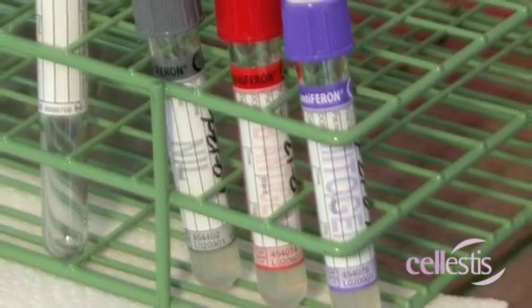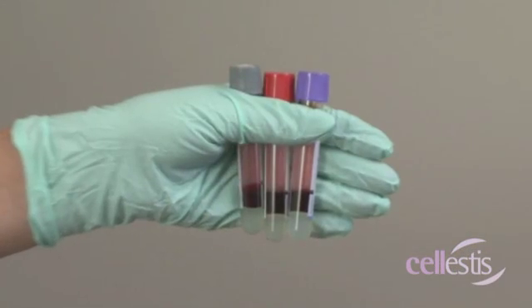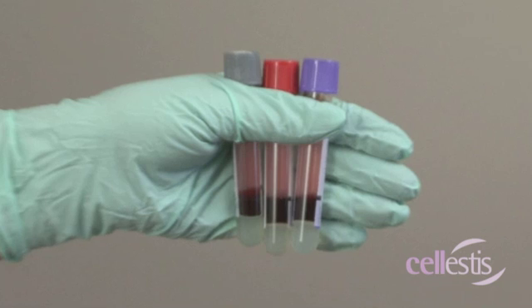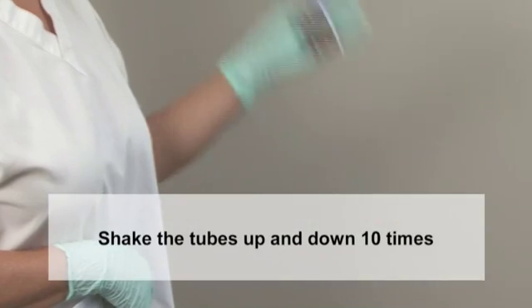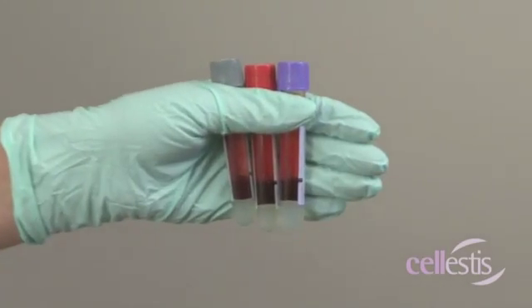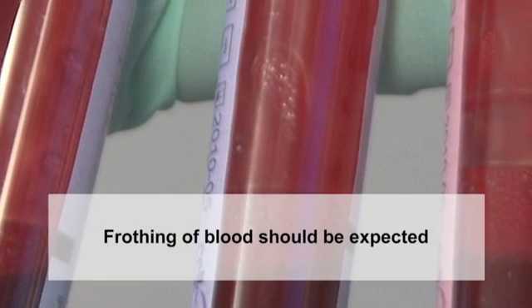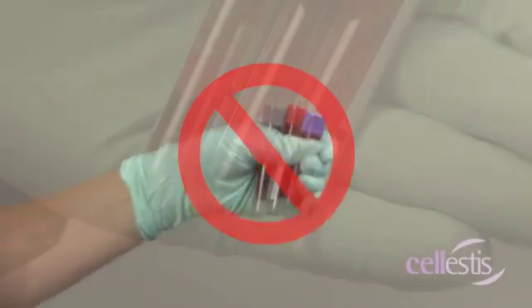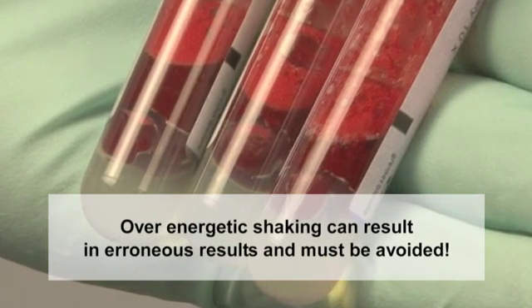The inner walls of the blood collection tubes are coated with heparin and stimulation antigens. It is important that these dried components are thoroughly mixed into the blood immediately following collection. This is achieved by shaking the tubes up and down ten times as demonstrated here. Proper shaking will ensure that the entire inner surface of the tube is coated with blood, and frothing of the blood should be expected. Over energetic shaking of the tubes can result in the gel dislodging and mixing into the blood, which can result in erroneous results and must be avoided.